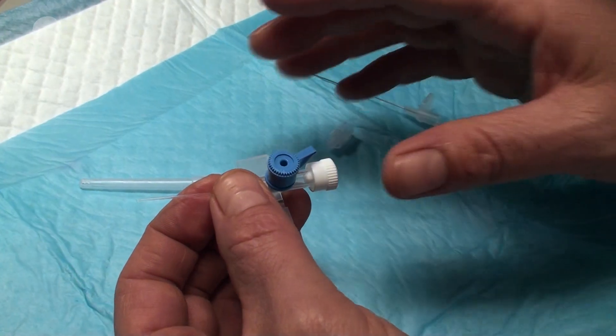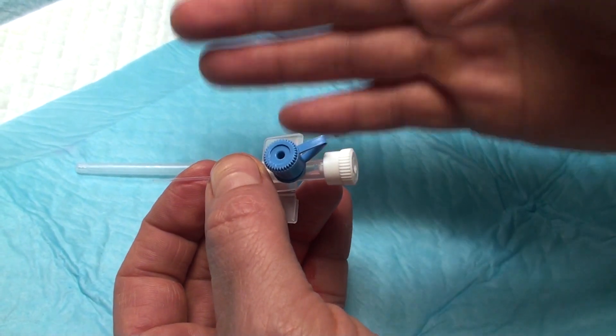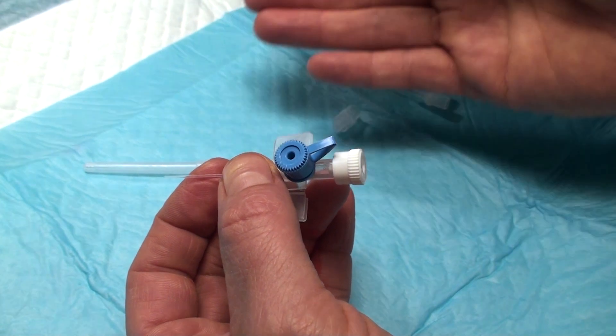Again, make yourself acquainted with this. Make your hand-eye coordination work before you try to do this on one of the dummy animals.